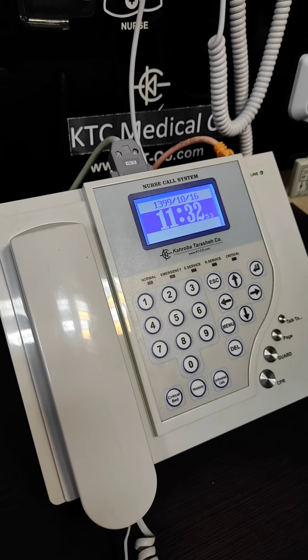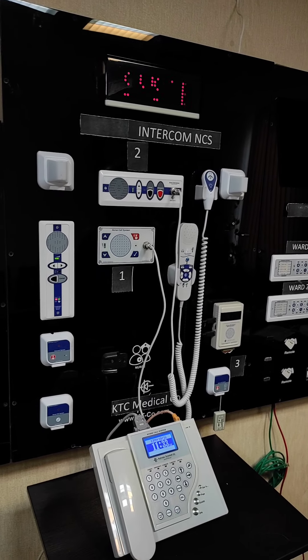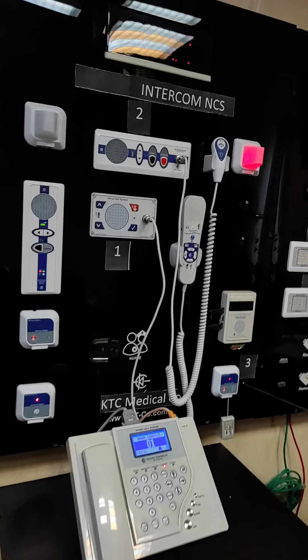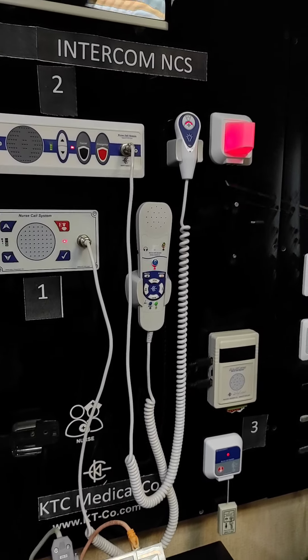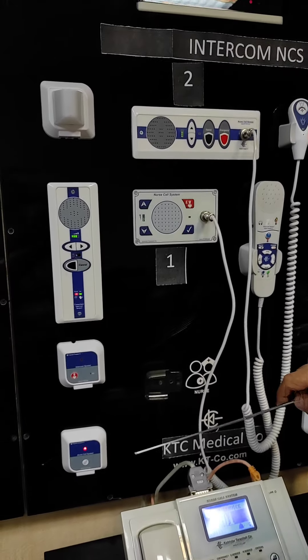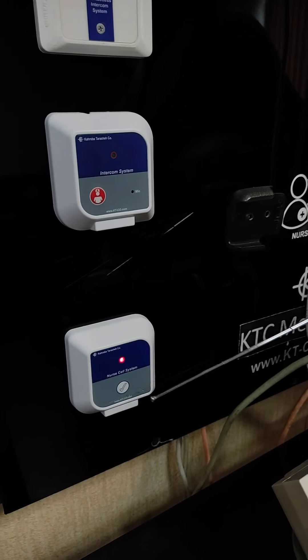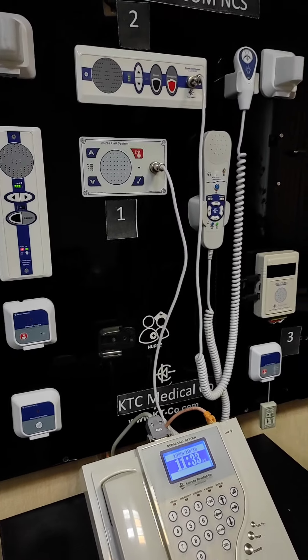This is one example of how the system manages different priority levels of calls. Finally, let's have a presentation of a service call. If somebody in the washroom pulls the cord, this is considered a service call — and again we have blinking red, which is not a normal call. Staff should go and take care of it. The cancel presence button next to the door of the shower is pressed, and the call is handled.